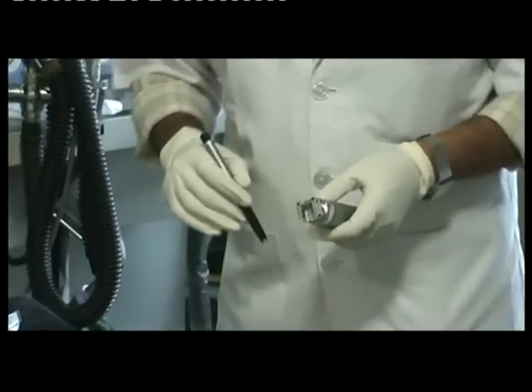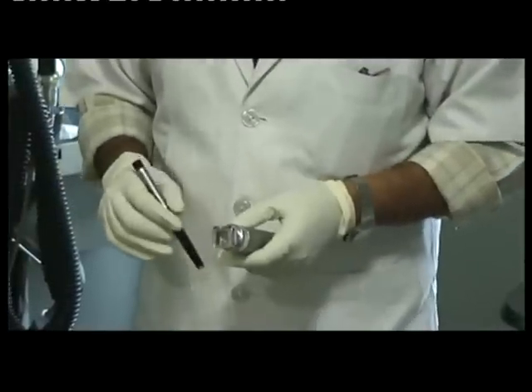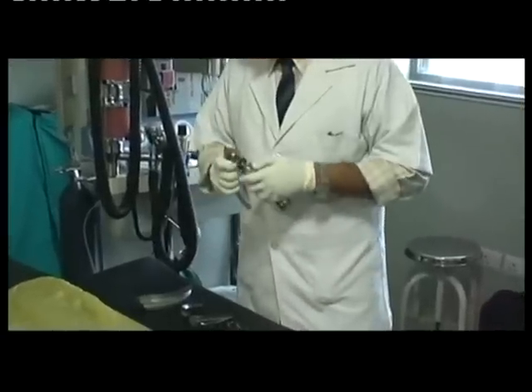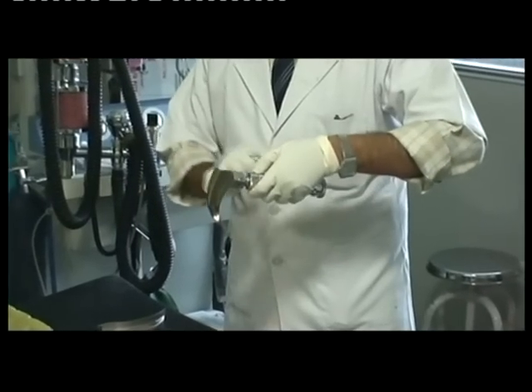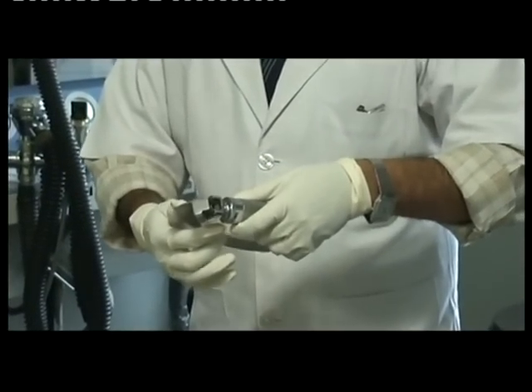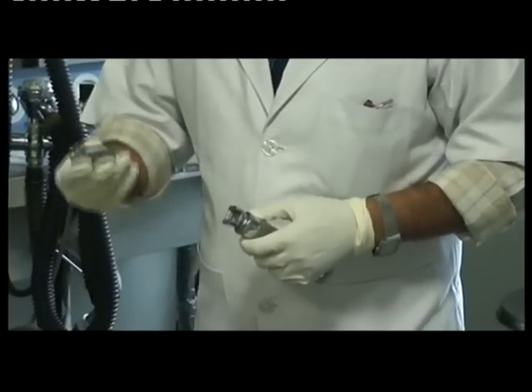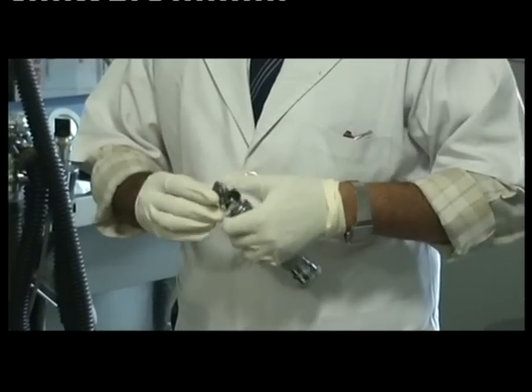To see the full details of laryngoscopy, I request you to visit my video on the art of laryngoscopy and the live demonstration of endotracheal intubation. But there are a few important points which I will illustrate here. This handle and blade form a right angle, which can be made acute or obtuse. This is the adapter which helps to change the angle.